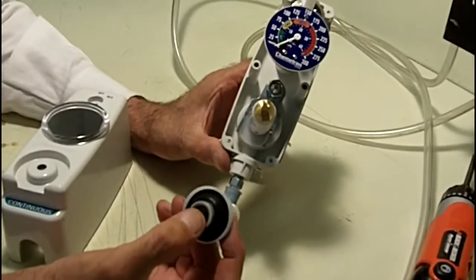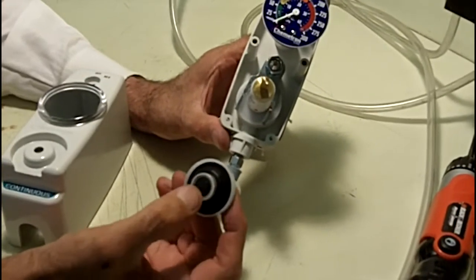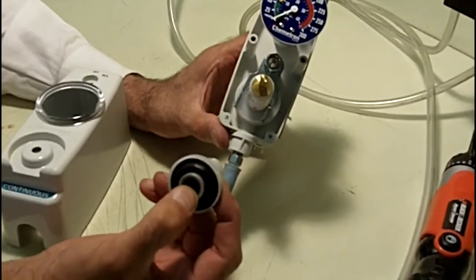Over time, that sensing disc will leave an impression, can fail, and the rubber goods over age and time can fail and allow you to get a higher vacuum level than we specify.